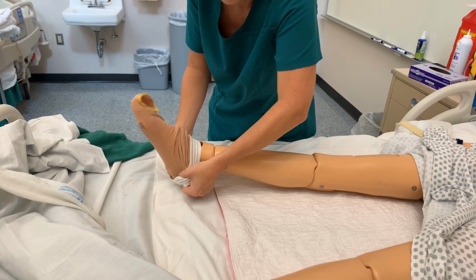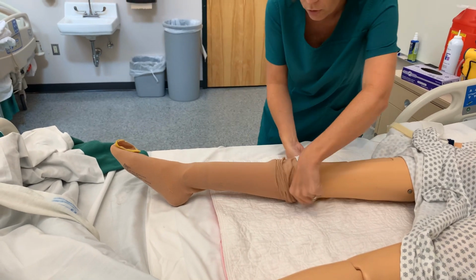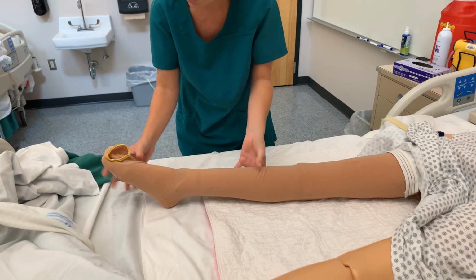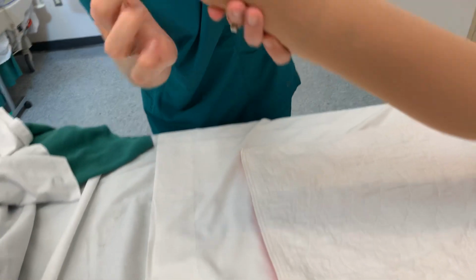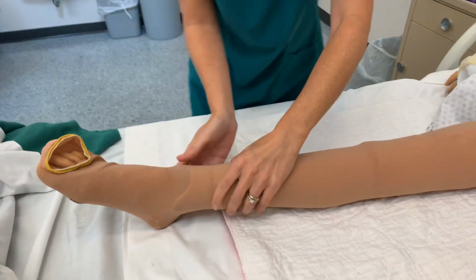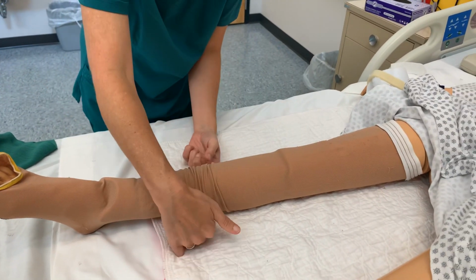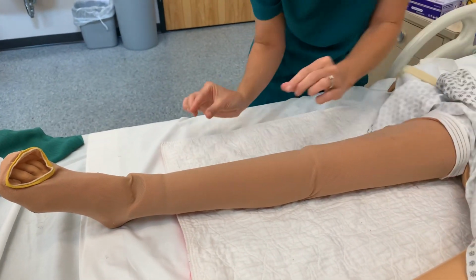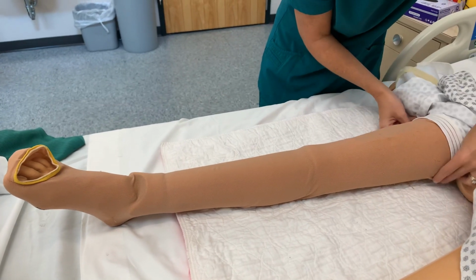Now these mannequins are made of rubber and plastic, so honestly they can be rather difficult for it to go on. And this one went on pretty smooth because it's actually kind of loose. But I want to draw your attention to a couple of things. First of all, where is the heel? So if I look here, here's the heel. So that's in the appropriate area. Now, I do not want cording or bunching because that could end up causing more harm than good. So I want to always be careful in straightening out the hose. Don't come in and just start pinching like that because you may pinch your client.